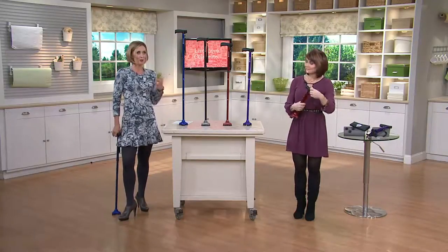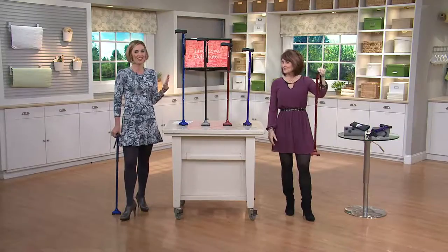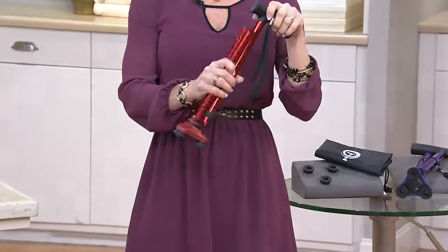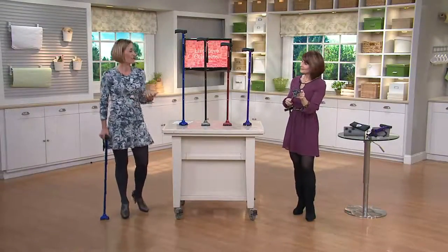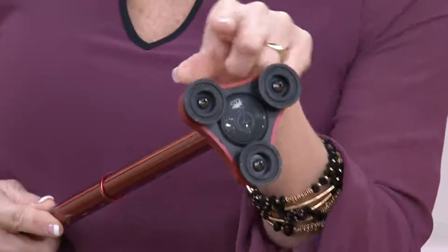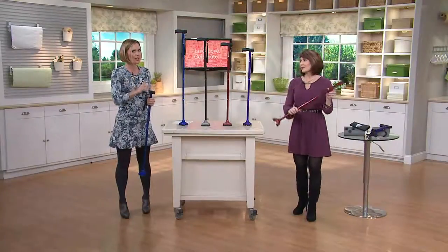Get one that's a great color. Get the one you're going to take when you go out, travel, or go on vacation. Pick the blue because it's your favorite color and keep the old brown one at home. Maybe you just retired and you're going to be walking around more — get the red. Put a little zest in whatever you're doing and wherever you're going. Do it with something that's going to be top of the line and the absolute best when it comes to a cane.